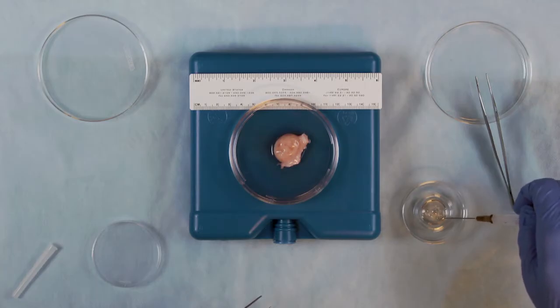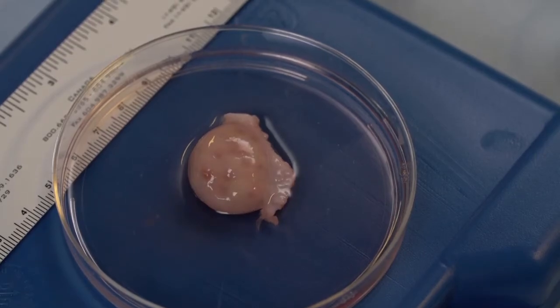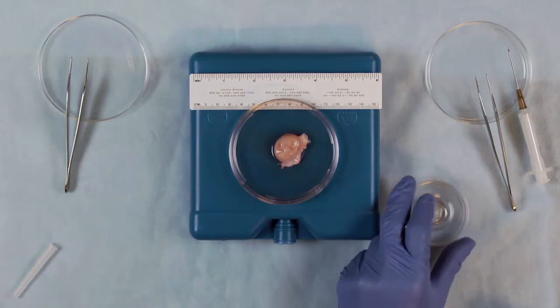Depending on your site, a portion of tissue may have already been removed for pathology. If still necessary, remove the specified portion now.